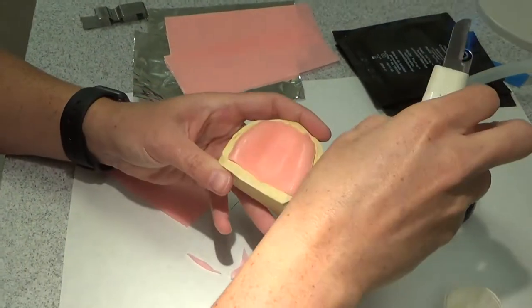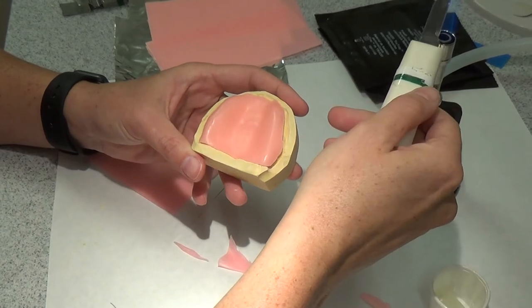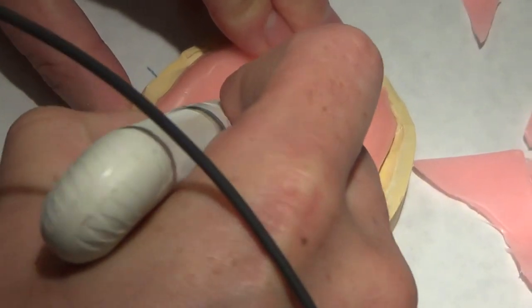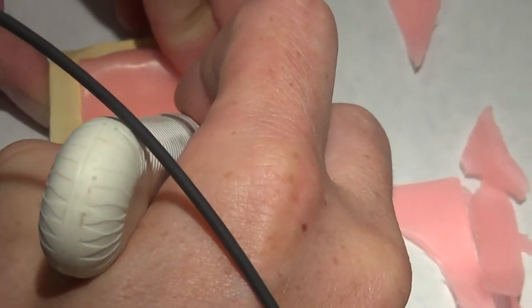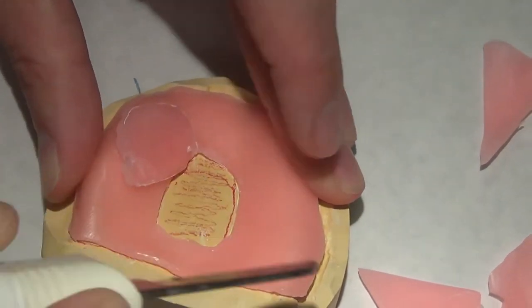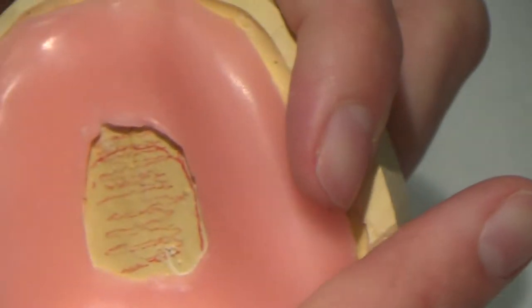So I'm going to come back and put in my stop. Again, because of that anatomy that she has, I'm going to modify my stop a little bit and not extend it completely distal through the posterior area. This is a little bit harder to do, even with a warm knife, just because this wax will get caught on itself. Have to be a little more diligent there.